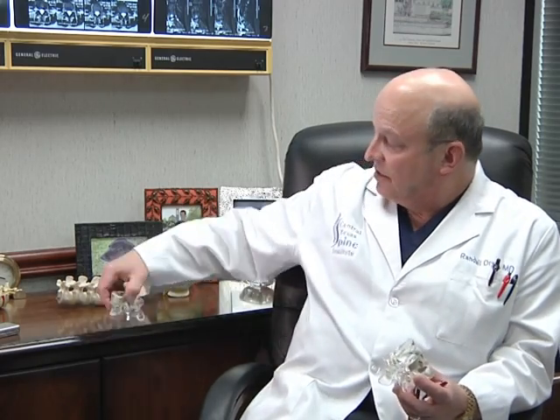The spine can be approached anteriorly, posteriorly, from the side, or anterolaterally. The key reason I frequently use an anterior approach is because I'm able to put an implant over a large surface area of bone. The Stalif cage is designed to pretty much cover the entire surface of the vertebral endplate.